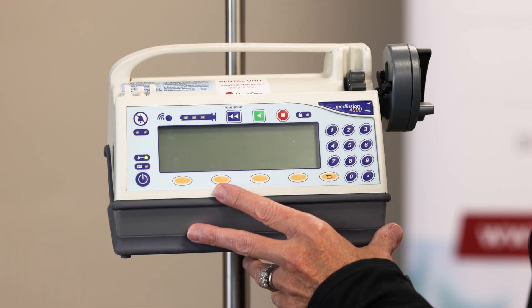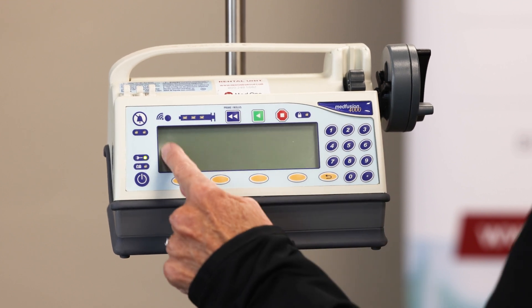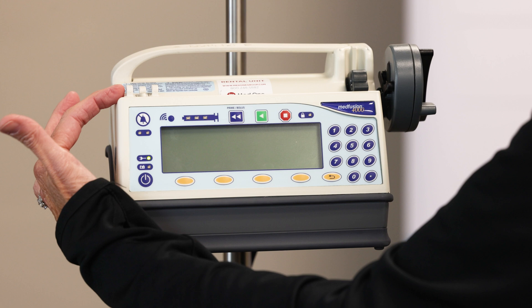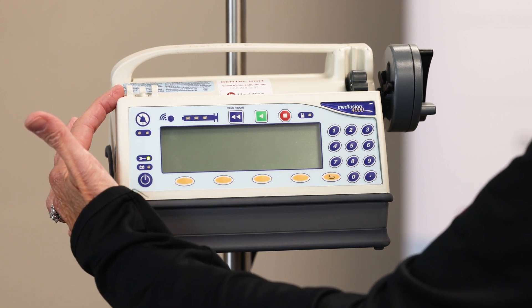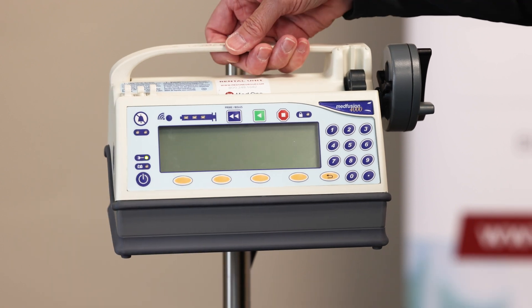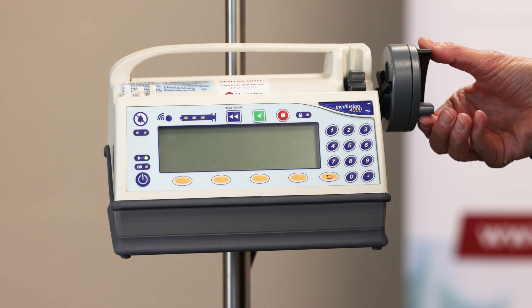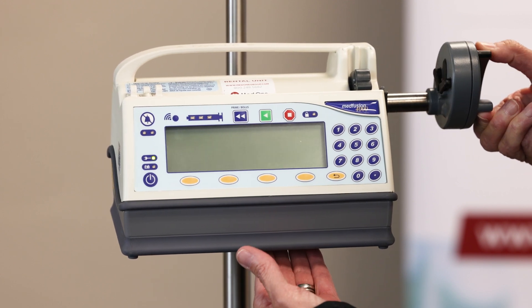Now we're going to talk about some of the features of the syringe pump. This area here is your screen. Up top are what's called tubing holders — this is where your extension set tubing is threaded to prevent any kinks in the line. This is the carrying handle; you lift it up to carry it. I'm going to open this up a little bit so you can see some of the other working parts when we load the syringe.